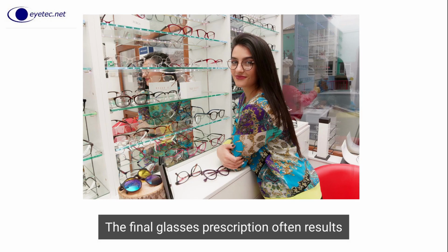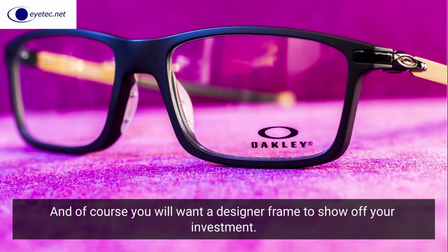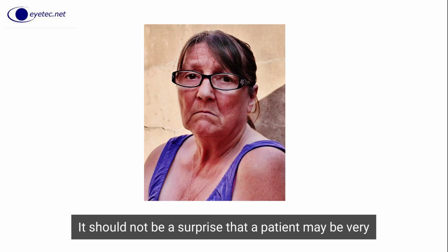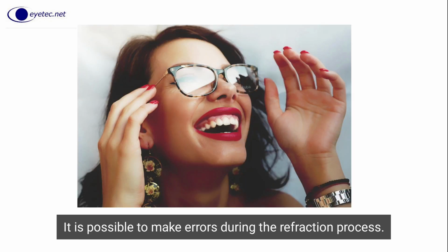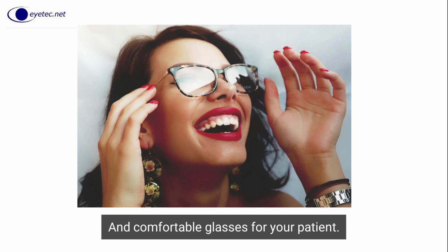The final glasses prescription often results in a sphero-cylindrical lens that must be custom-made. And of course, you will want a designer frame to show off your investment. The final tab for the patient is usually measured in hundreds of dollars. It should not be a surprise that a patient may be very unhappy if the new glasses are not performing as anticipated. It is possible to make errors during the refraction process. It is our goal to give you the tools to enable you to achieve great vision and comfortable glasses for your patient.